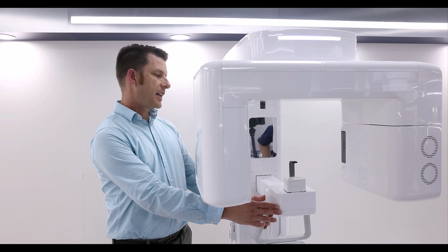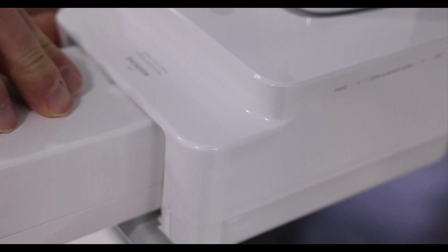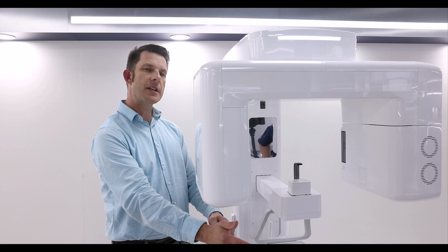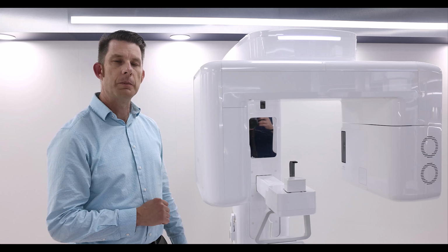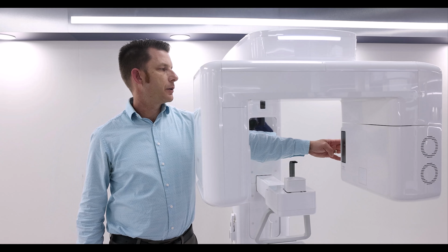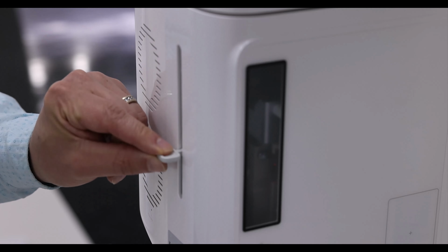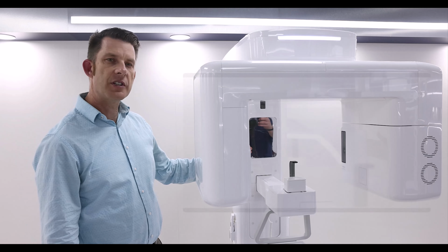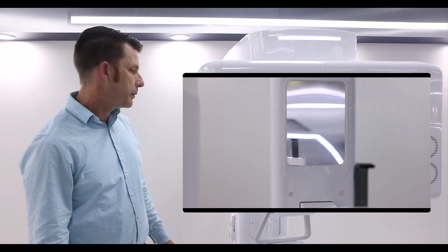One function of the A9 to move from pano to CBCT is you will move the entire chin rest back away from the column for CBCT and forward towards the column for pano mode. The A9 also includes a horizontal beam adjustment specifically for our Frankfurt horizontal beam, and a patient positioning mirror where the patient can see themselves in the mirror.